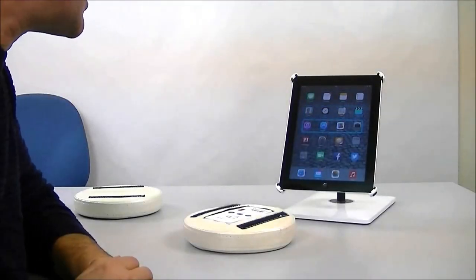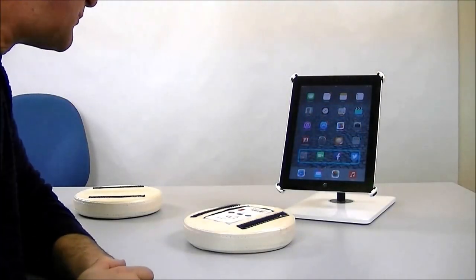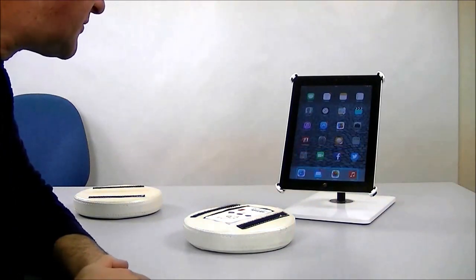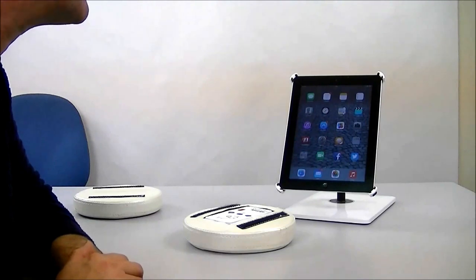The next activity I'd like to demonstrate is tap mode. This is perhaps one of the most useful features the product has and basically allows the unit to behave as a switch.